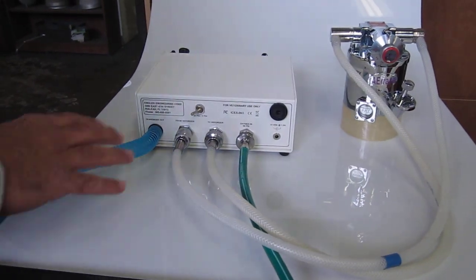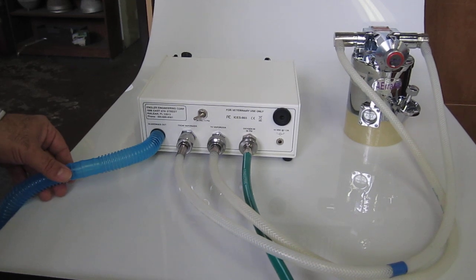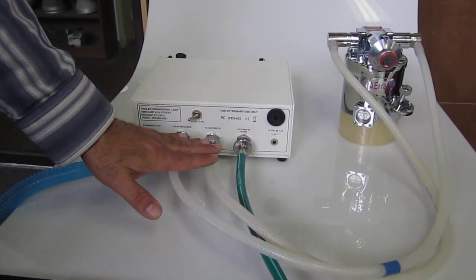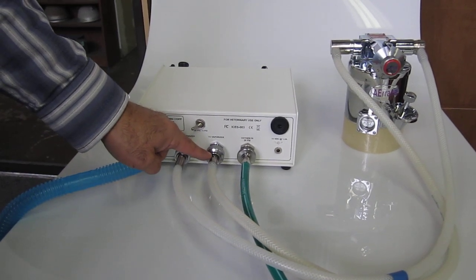On the back of the ADS-2000, we have the scavenger out hose. The silicone white hoses are the from vaporizer, to vaporizer hoses.